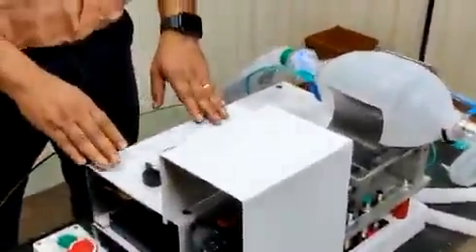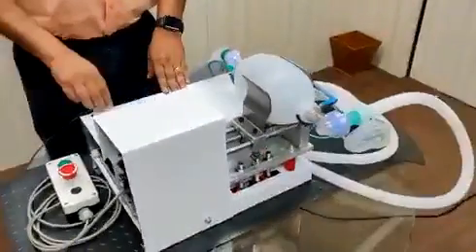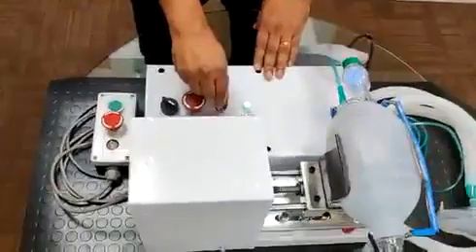Let me explain the key features of this device and start it up. The rate of air pumping can be controlled with the help of the speed control switch provided. There is a potentiometer which controls the RPM of the motor.